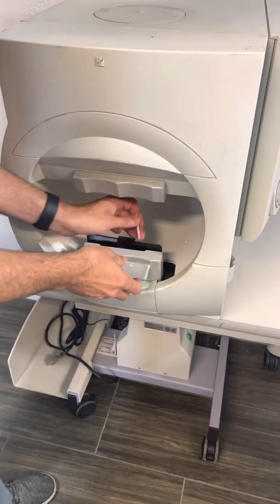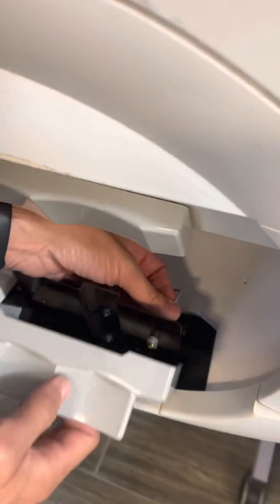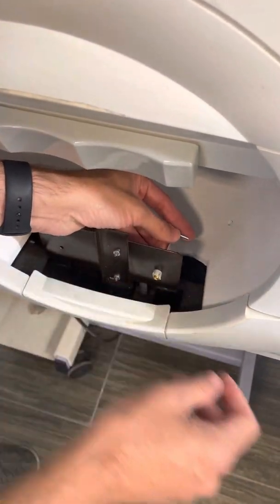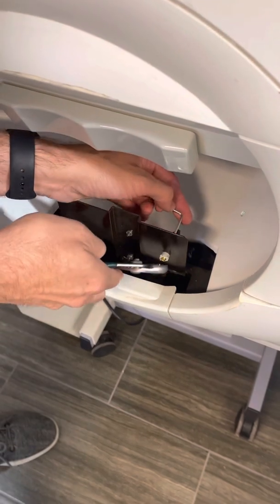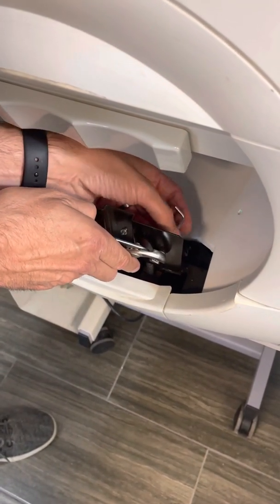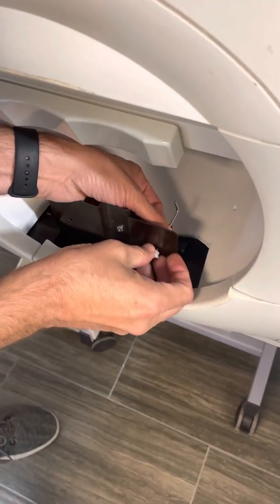If it's just loose, go on the back side of the allen screw, apply the allen wrench to the allen screws and take this off. You'll stick it on the back side, and if it just spins, grab it with the pliers and loosen it up.